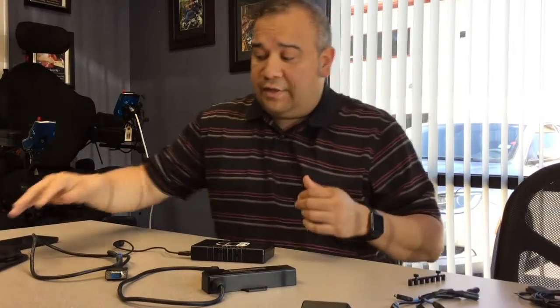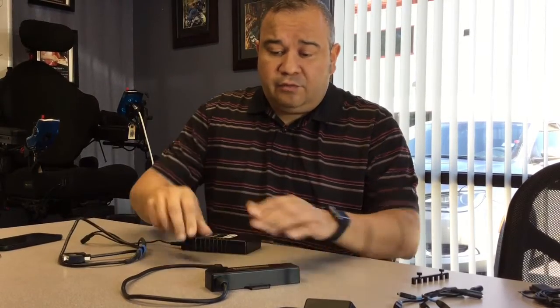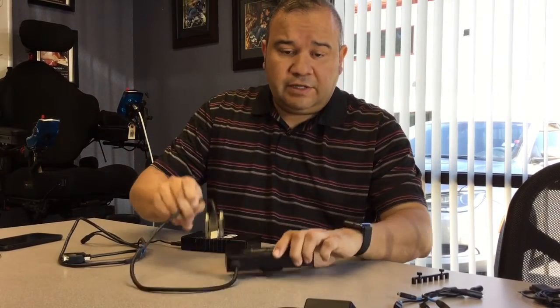So this is pretty much what I had here on the table. I had our battery that we're offering now. This is of course our new Bluetooth interface. And in this assessment we tried a couple of different switches — we tried a proximity sensor and a mechanical.